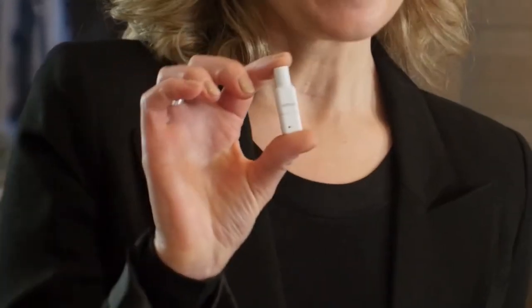Mom! What's going on? He's not feeling so well, so I was going to take his temperature the old-fashioned way. Nope. Relax. There's a much easier way now. We just started using these at work. The TempBuddy. With COVID and some of the sales staff traveling between meetings, it's a quick, convenient, contactless way to get a temperature.